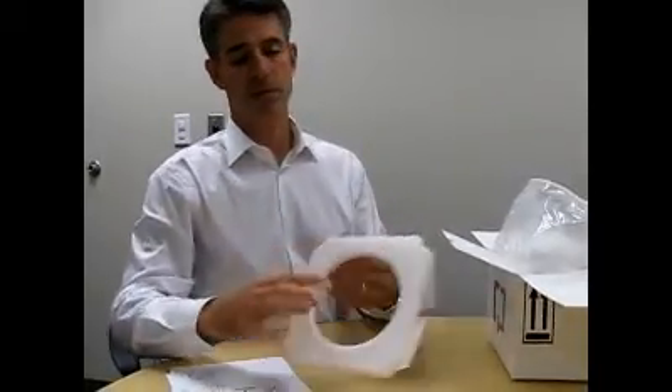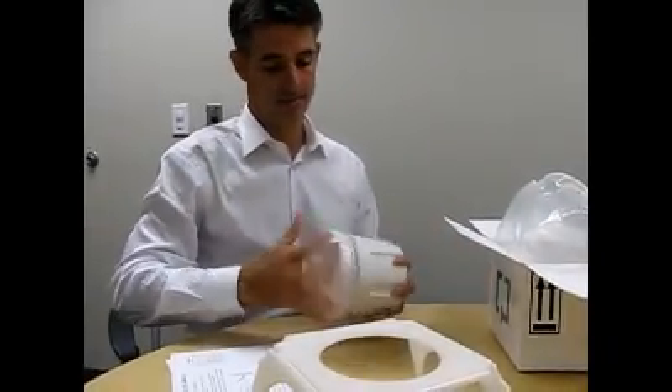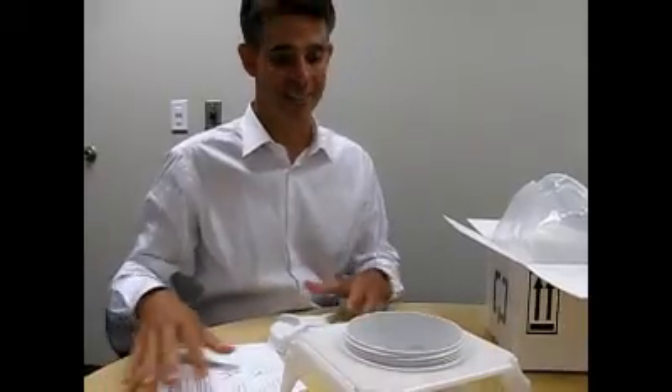You take out this bracket — this bracket goes over the toilet bowl, and the toilet seat comes down over. After that occurs, you take this collection device and slide it in there, and then the magic moment comes and the patient provides a sample.